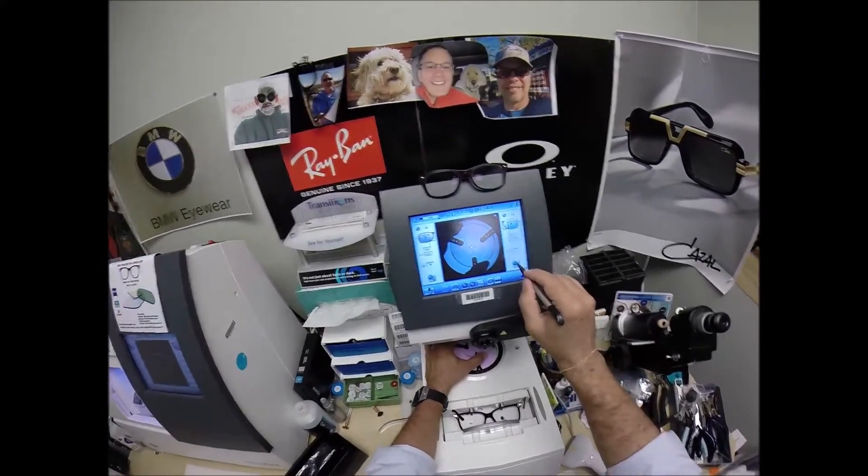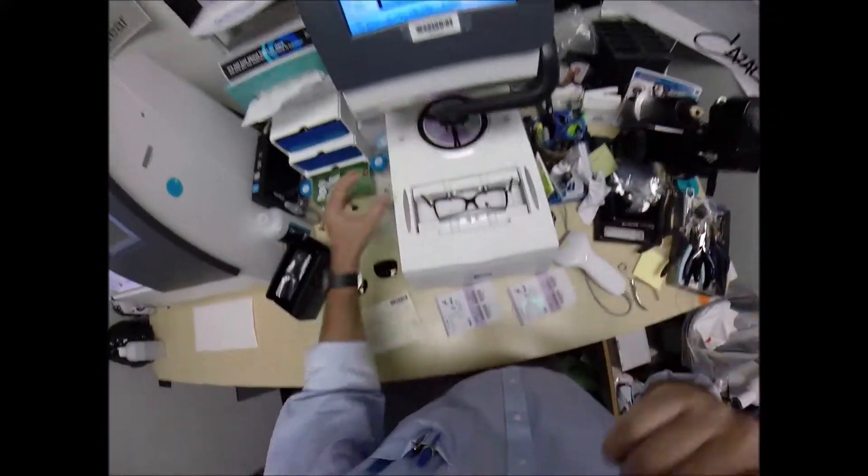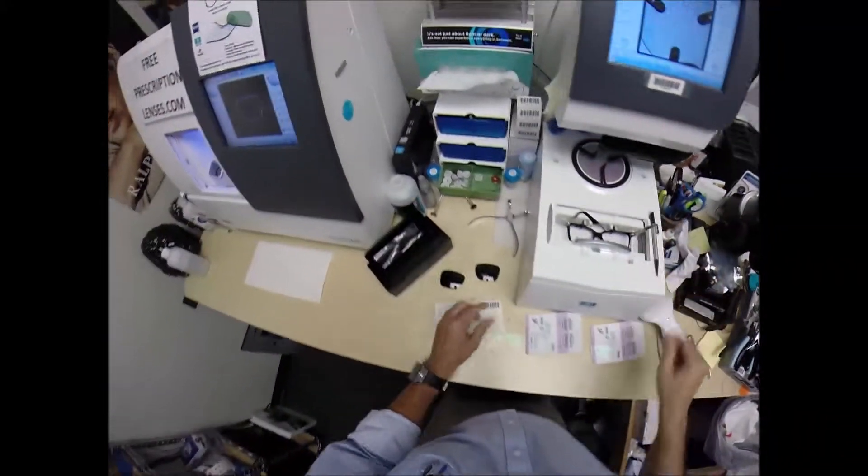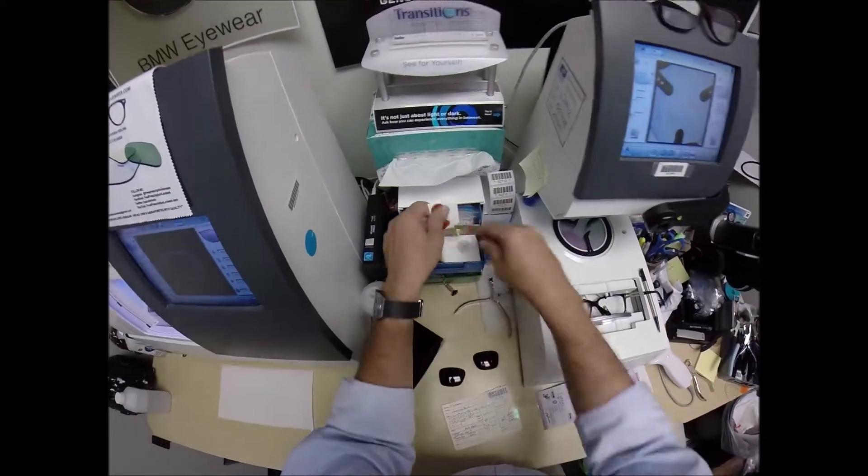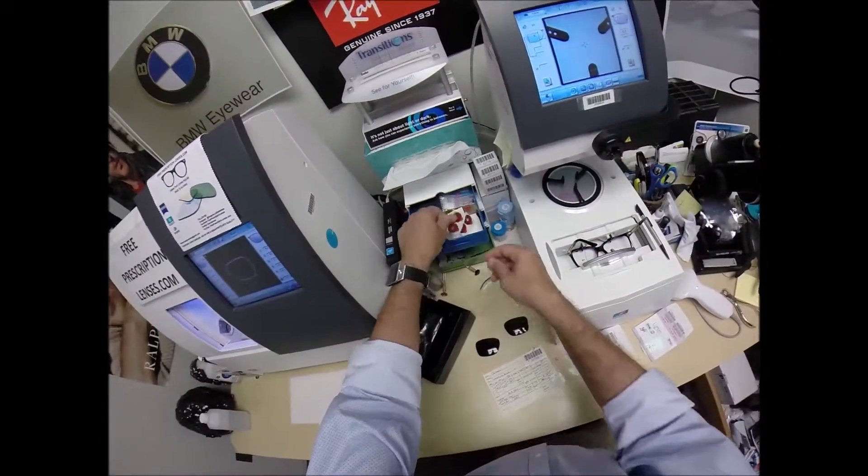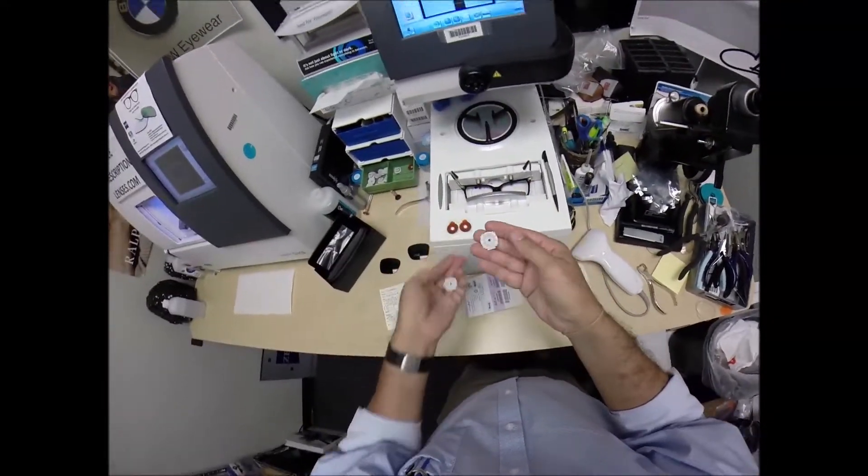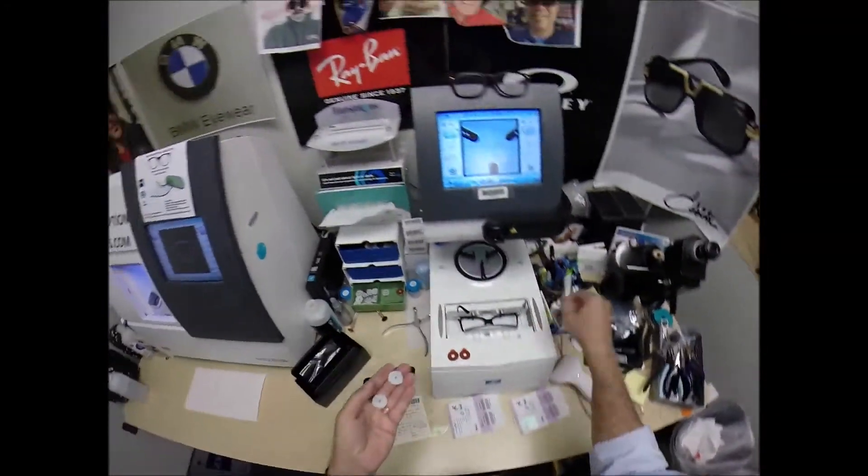Check to make sure the lens is large enough. And it is. I missed a step. I need the blocks. This is a block. Of course, I like to call them Jenny from the block. I need to attach this to your lens while it is cutting.